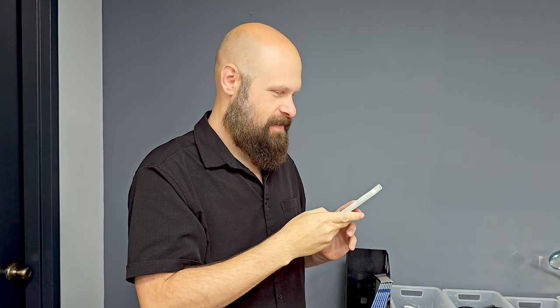I've been testing the SmartVision 3 for about a week now, and as a phone I haven't had any problems with it. It makes and receives calls very well, and call quality is really good. I love the ability to put two SIM cards in — if you had a work number and a personal number, it would be great to have both going into one phone. The user interface is great and I love the simplicity of it. The only issues I've had are normal TalkBack issues, like when you have the focus box on the clock it will announce every single minute.